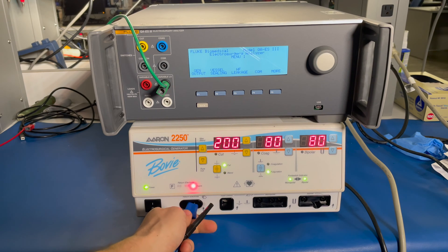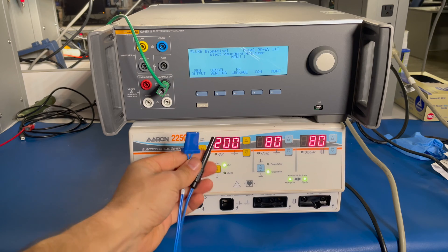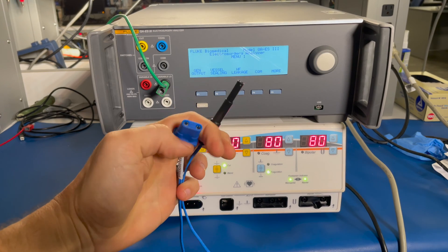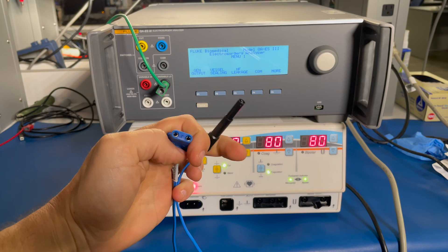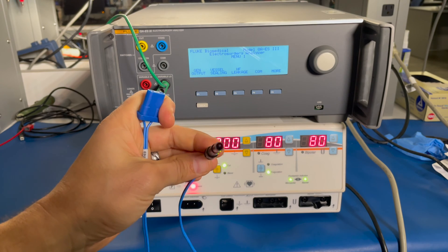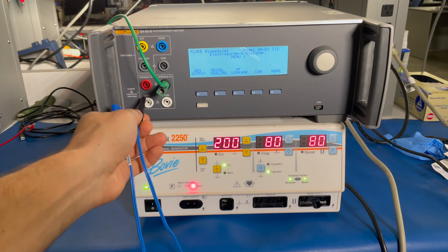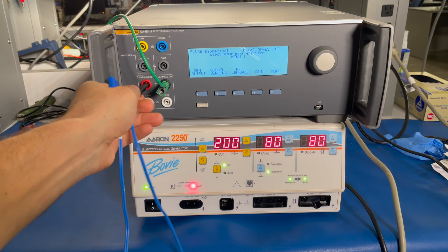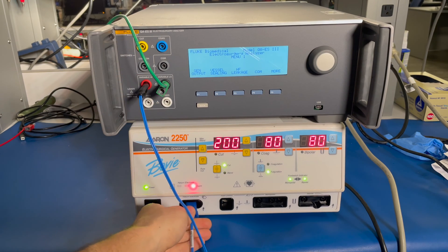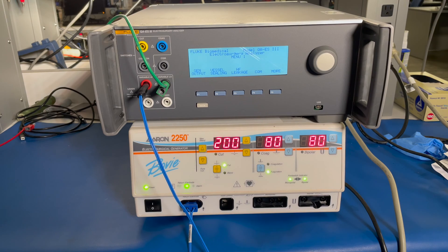We're going to start with the return electrode test. We're going to take this cable — it's your standard return electrode connector with the two leads shorted out — and connect it to the variable high. That goes to the variable high and into your return electrode port. Next, I'm going to install my foot switch.